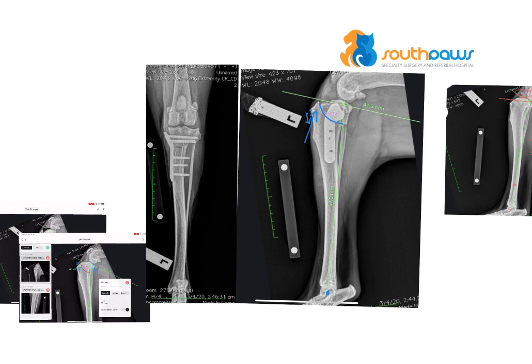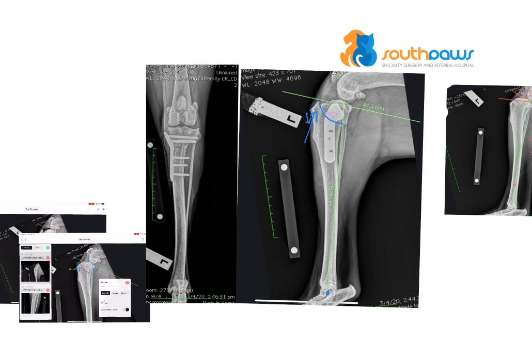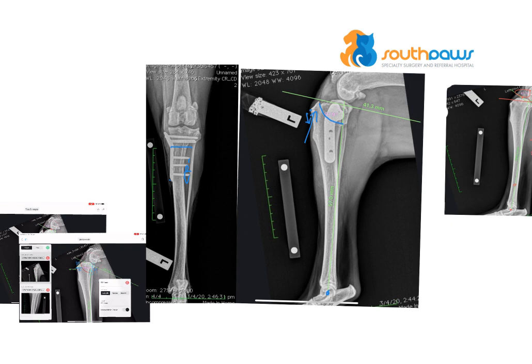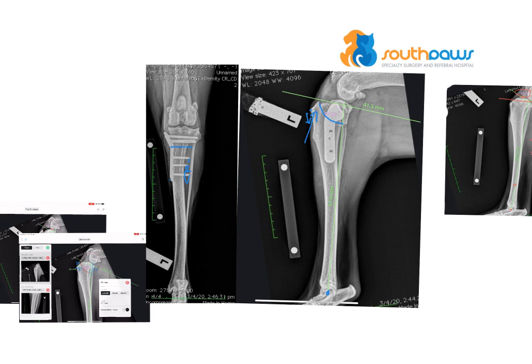On the AP view, we're looking to make sure all the screws are engaging both the cis and trans cortex on both sides. These screws are a little bit long but I'm not too concerned about that. Proximally we've got a nice perpendicular cut through the bone, plate location is good, and no screws are penetrating the joint. Alignment appears excellent, so I'm very happy with these post-operative x-rays.